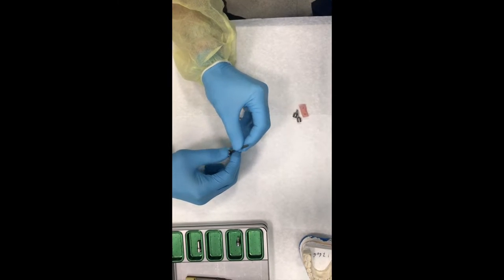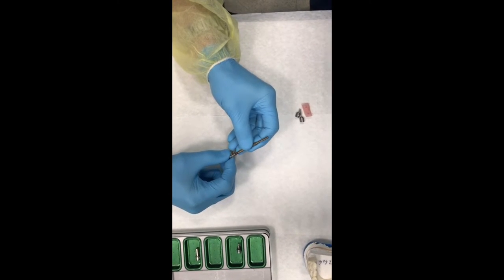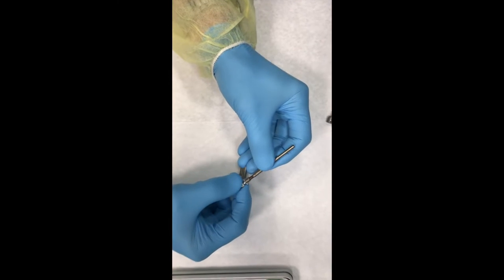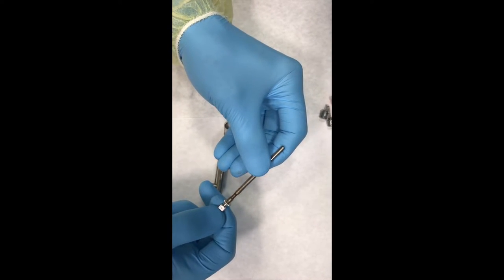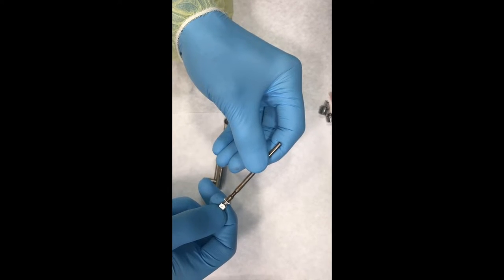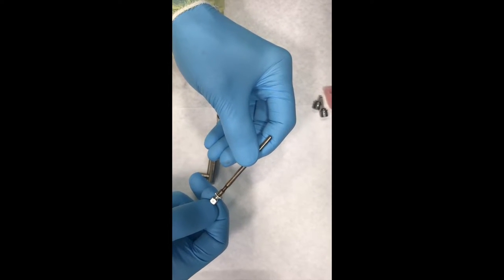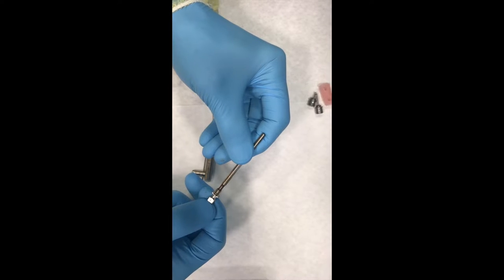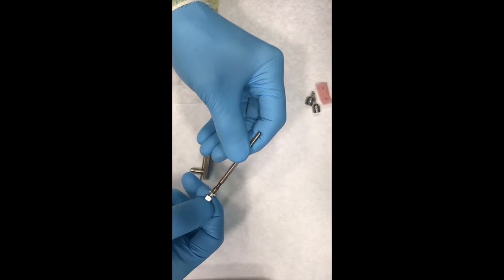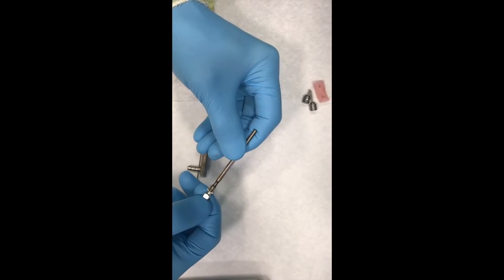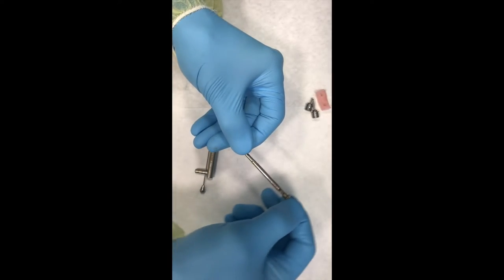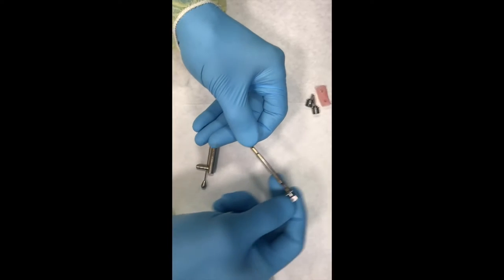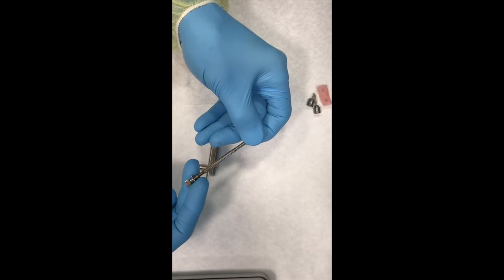Now, this little portion here is where all the action happens. It's got a little knob that you can pull and switch directions on, and this direction tells you the direction in which you are going to be engaging the driver. Engaging the driver. It doesn't mean tightening or loosening. It simply means engaging the driver, where the opposite direction is going to be ratcheting. Click, click, click, drive. Is that making sense?